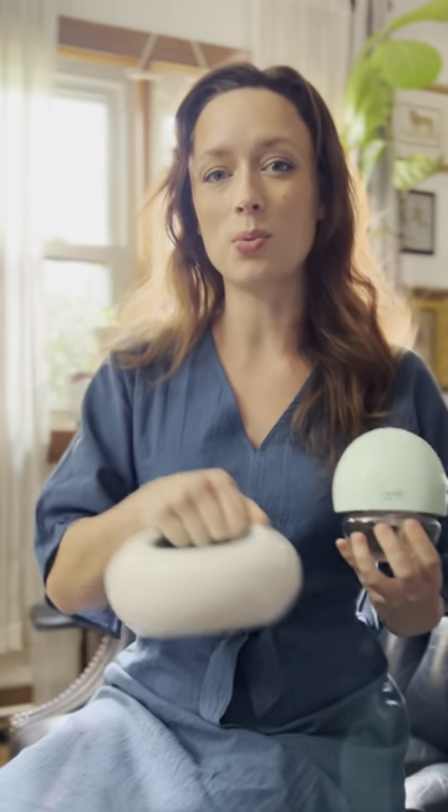While this is a very portable pump in that it's very lightweight and easy to take around, you still have to tote it around if you move from place to place. This is designed to stay attached to you, completely hands-free, and no wires.